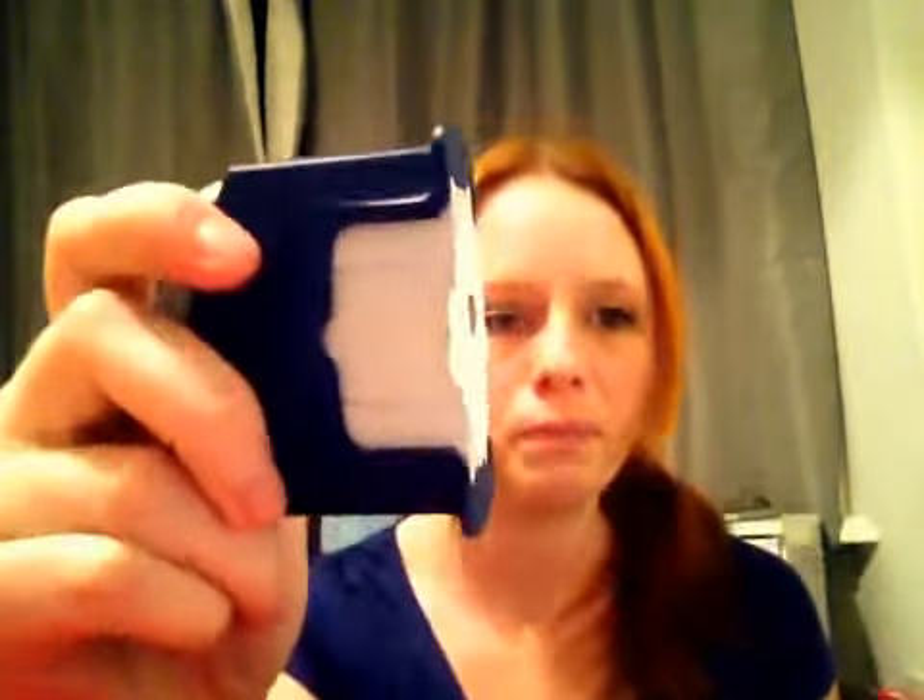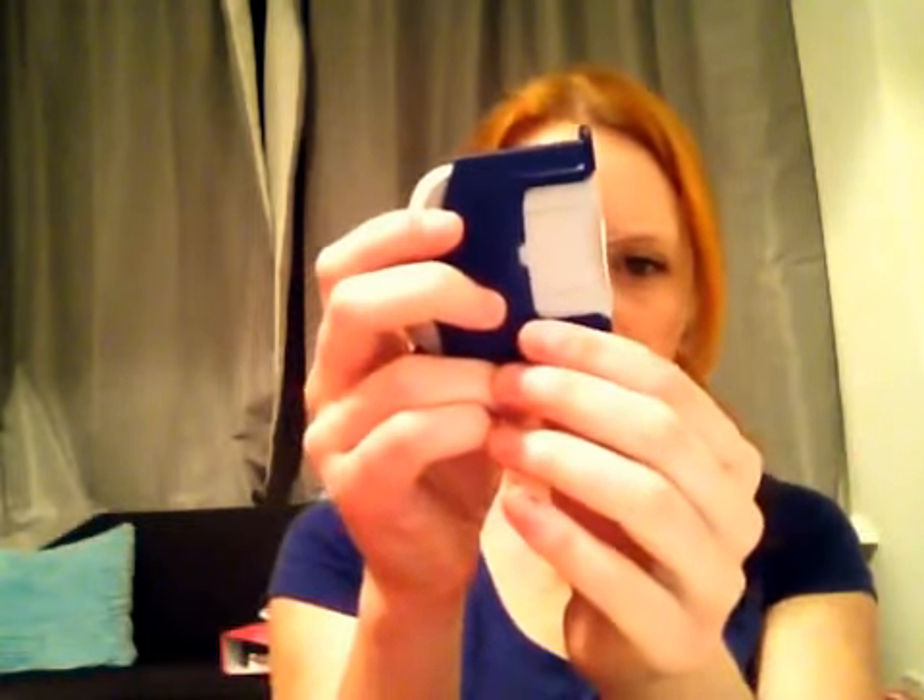So I'm going to do that now. I've taken out my old cannula and put my new one in. Take off the bit of plastic that covers it - there you go, big close up. It's not that big actually, it's really small. Here is a needle with a cannula over the top of it - the cannula is so fine I can barely see it, but they both go in at the same time.